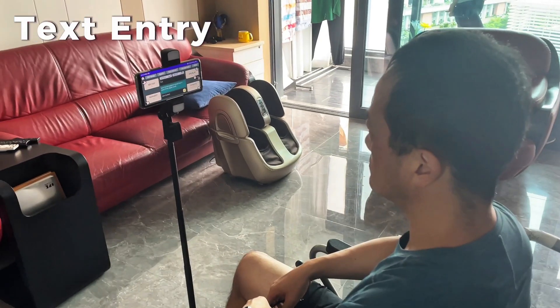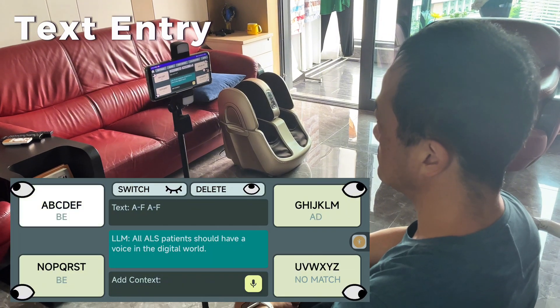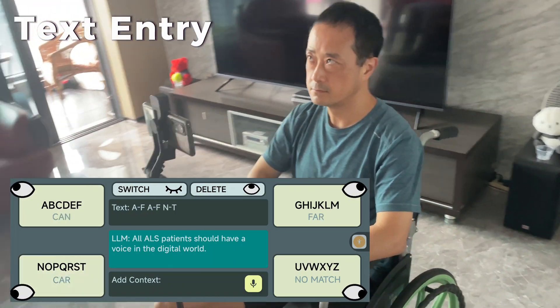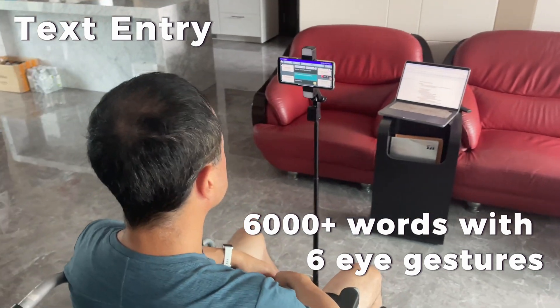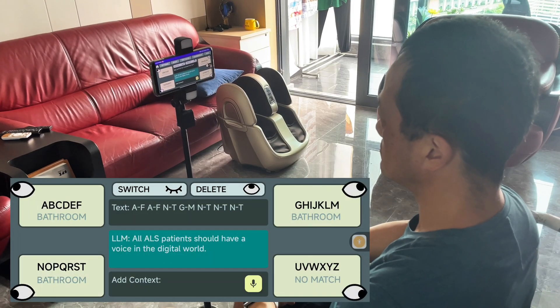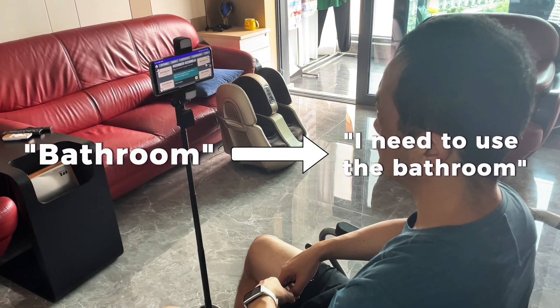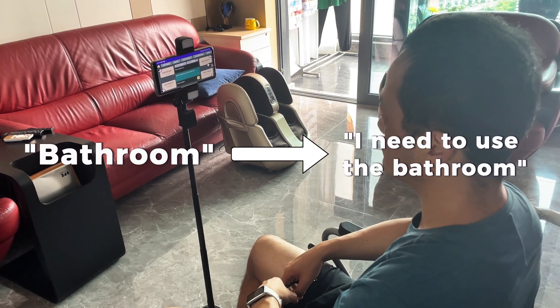Now, the user can begin the text entry process. I designed a unique, blurry input keyboard so users can type up to 6,000 different words efficiently with only 6 eye gestures. To further improve the text entry rate, I trained an AI model to predict the user's intended sentence based on keywords.